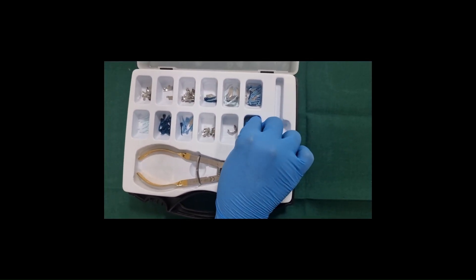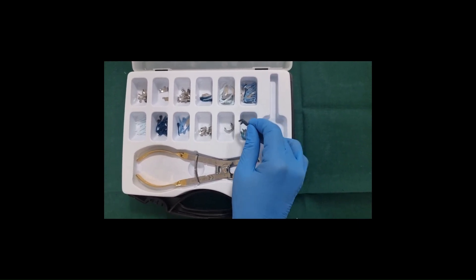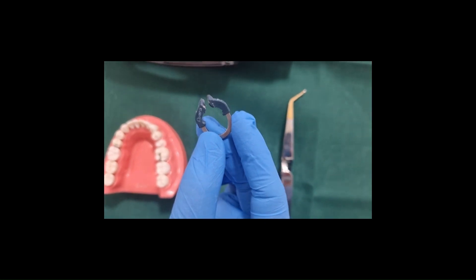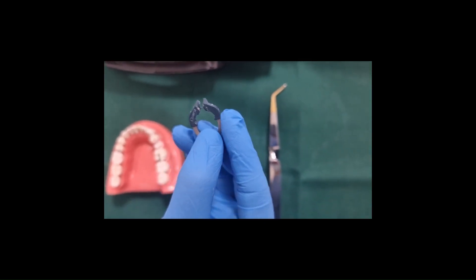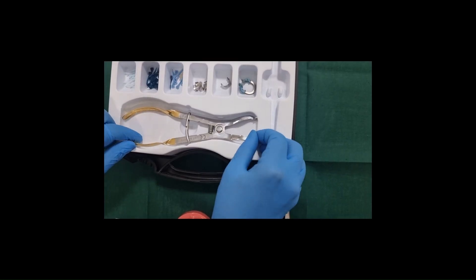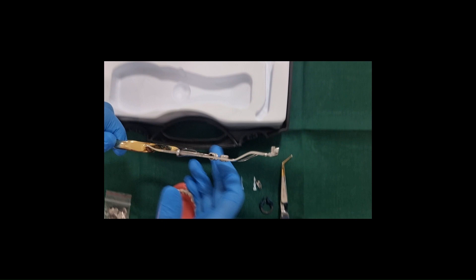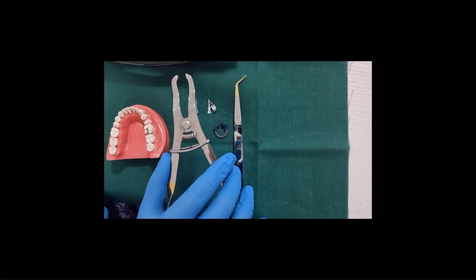This is the V3 universal ring. There are two rings — large and small. The V-shaped tines in the ring accommodate the wedges from both sides. And this is the forceps used to stretch the V3 rings during placement onto the tooth.